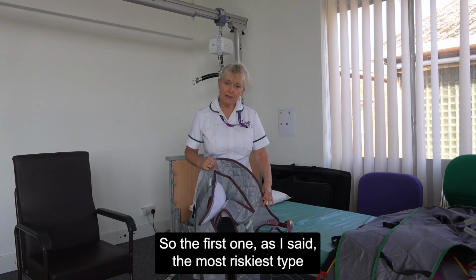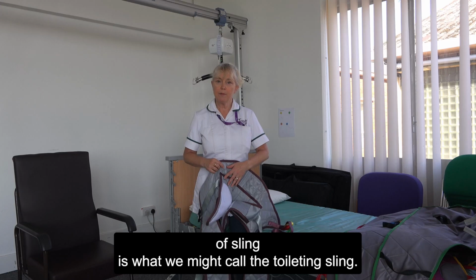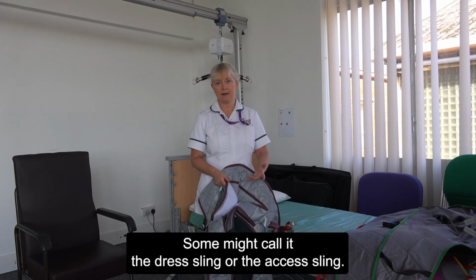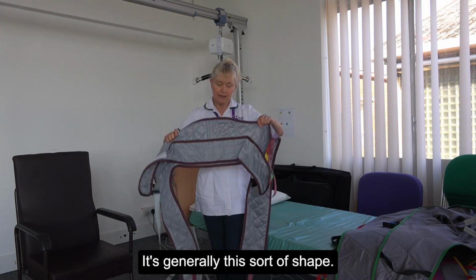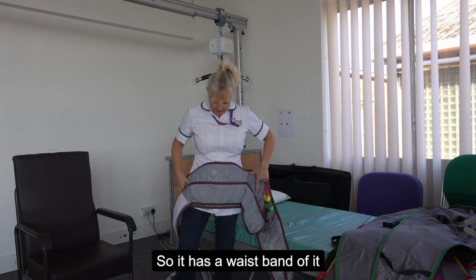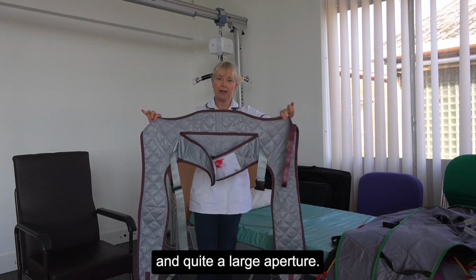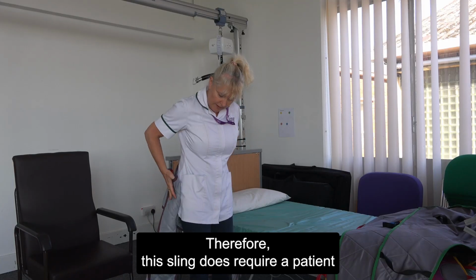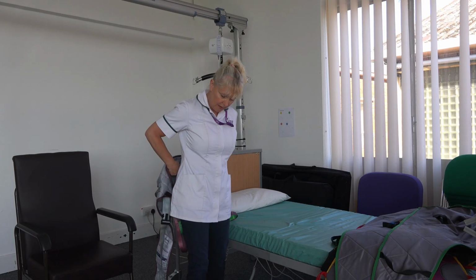The first one, as I said, the riskiest type of sling, is what we might call the toileting sling. Some might call it the dress sling or the access sling. It's generally this sort of shape. It has a waistband on it and quite a large aperture. Therefore, this sling does require a patient to have good core strength and sitting balance.